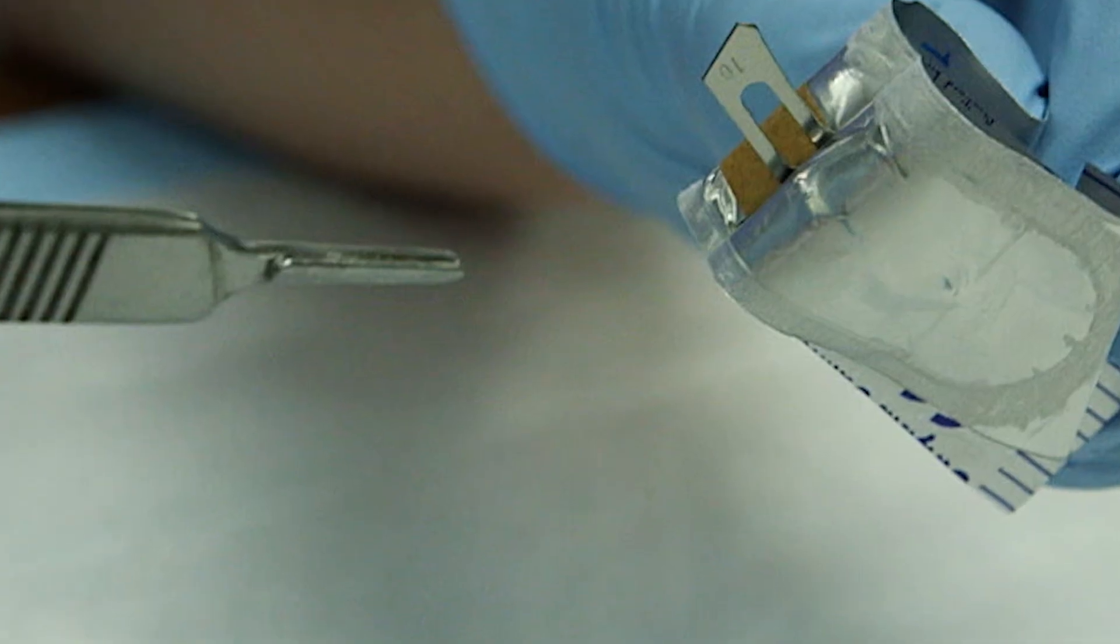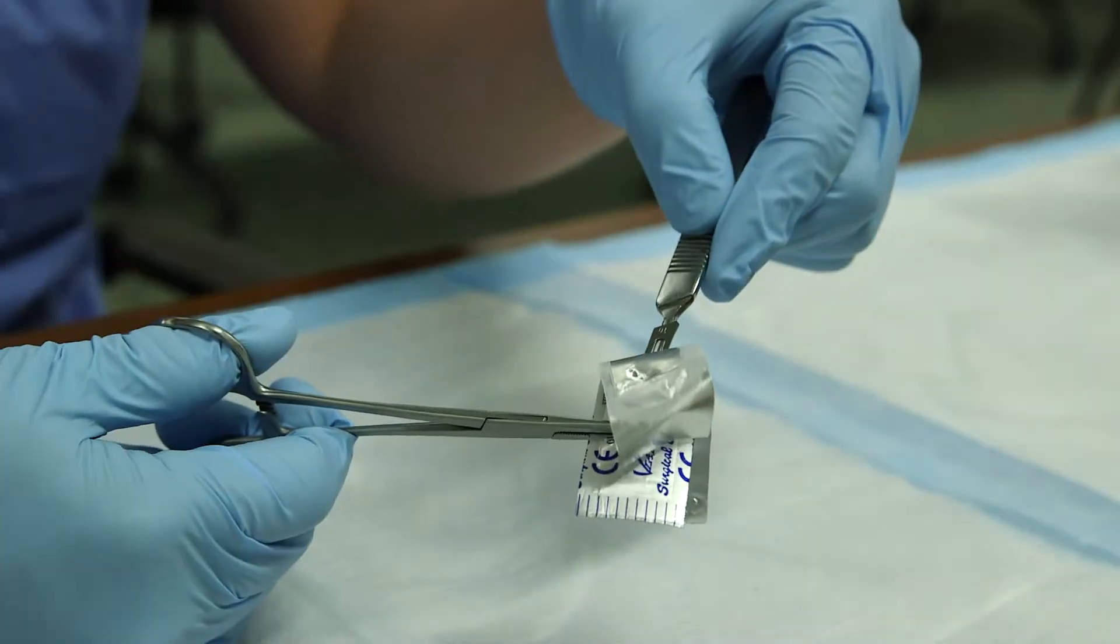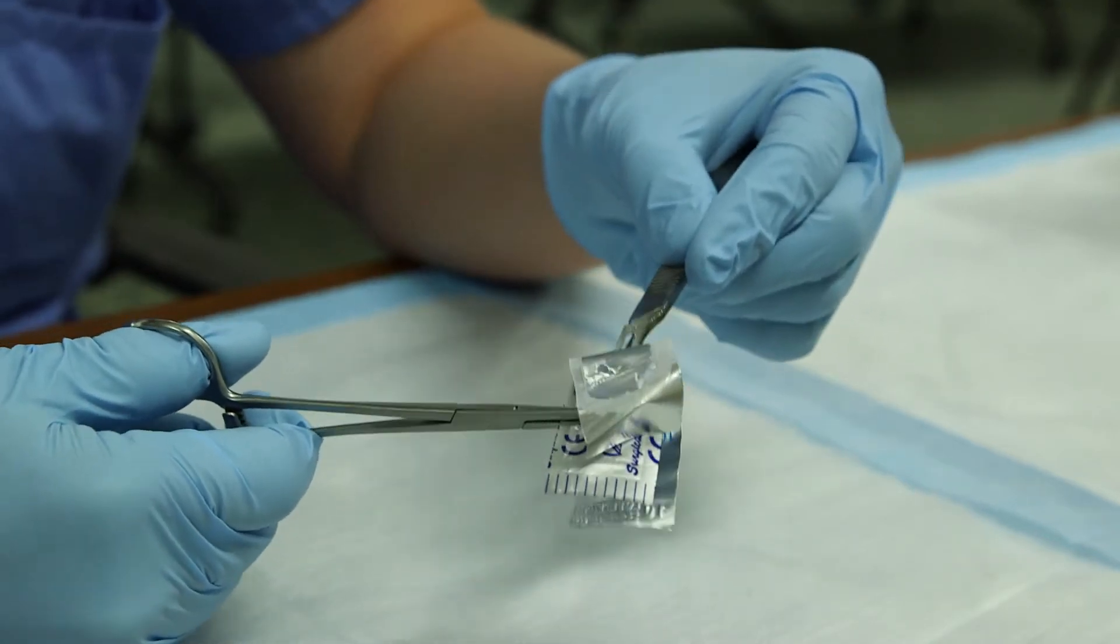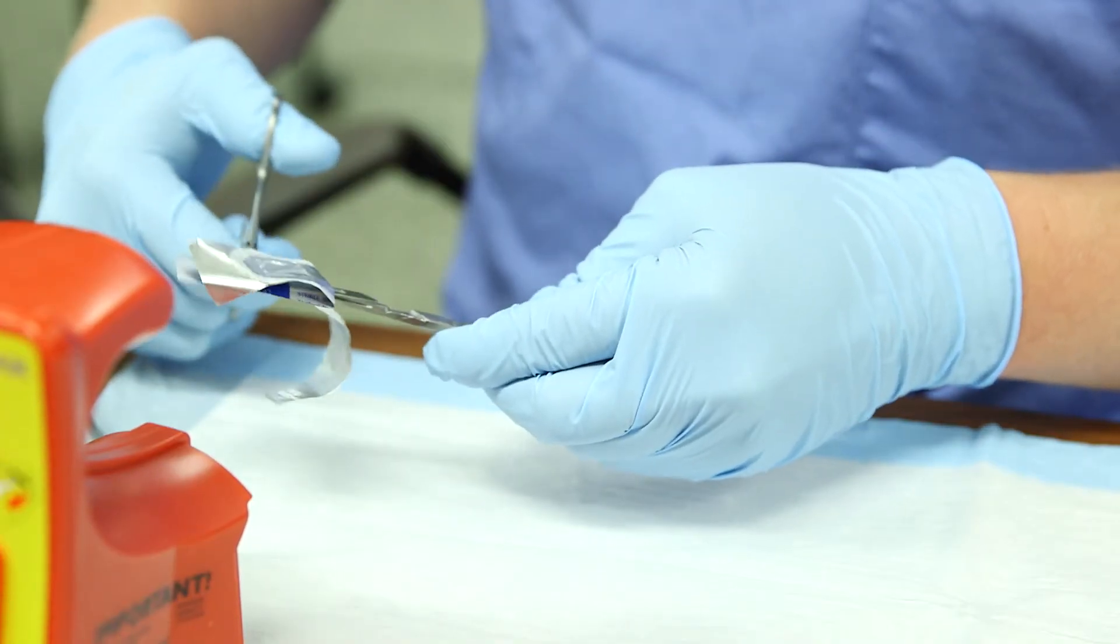Use your needle driver, forceps, or hemostat to grab the end of the blade, keeping your fingers away from the end of the blade. Next, take the handle and engage the blade. Gently press forward.